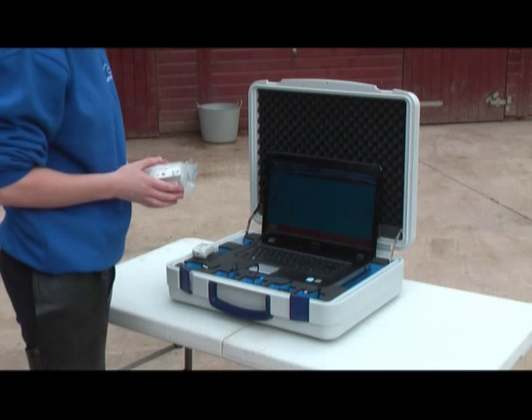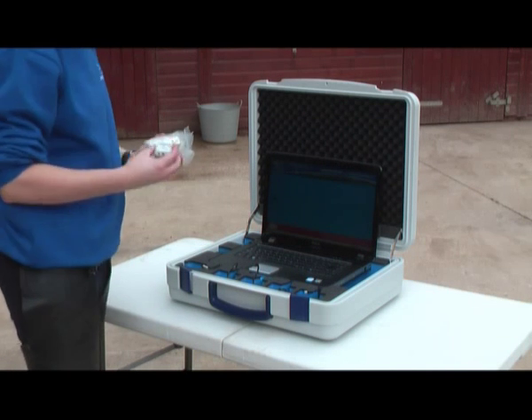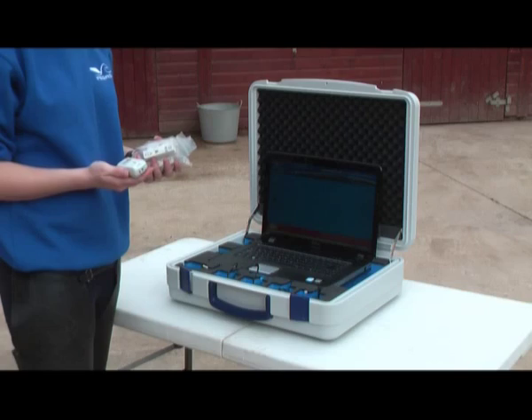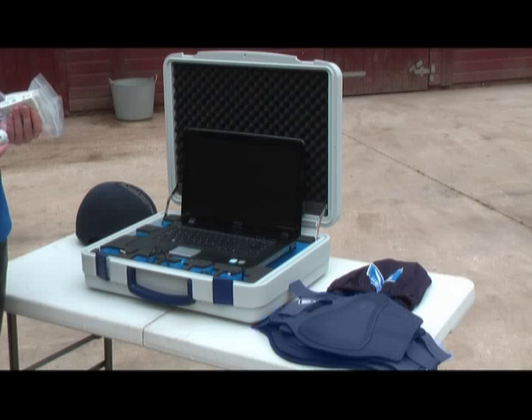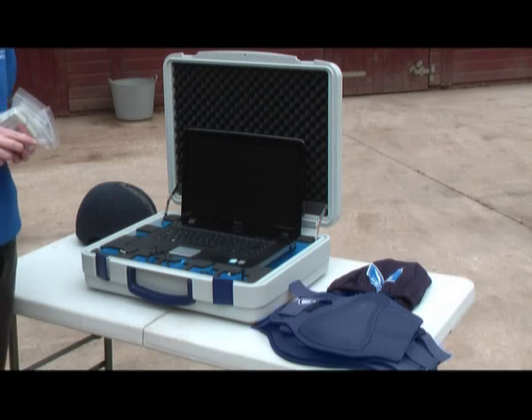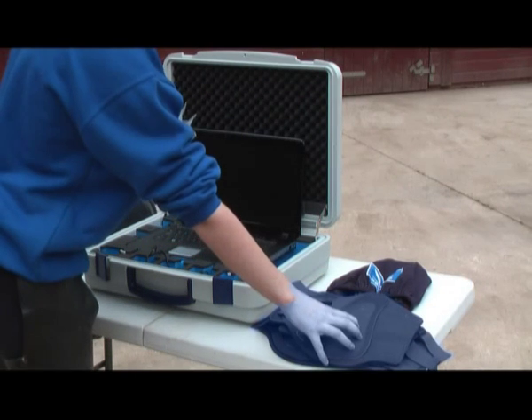That's all four limb sensors and my GPS unit ready to go. We have to find ourselves our horse and also have our brushing boots and silk cap ready to go to hold all the sensors.